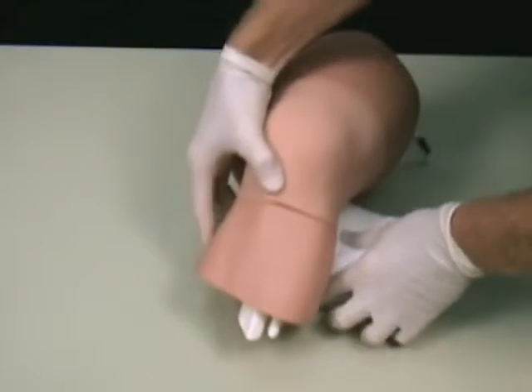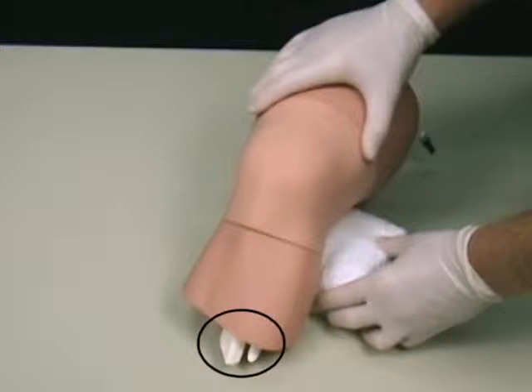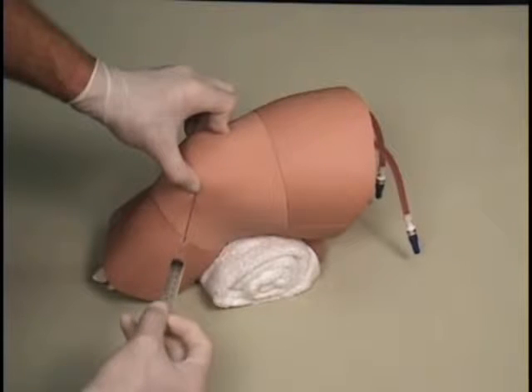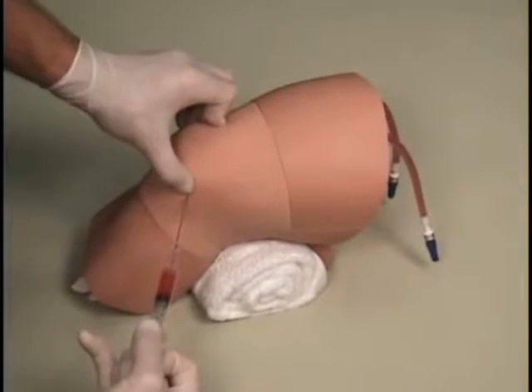For orientation, the base of the model reveals the tibia and fibula bones to indicate that it is a model of a left leg. The ultrasound-compatible tissue can be filled with clear water or water that is colored red or yellow for a desired diagnosis.